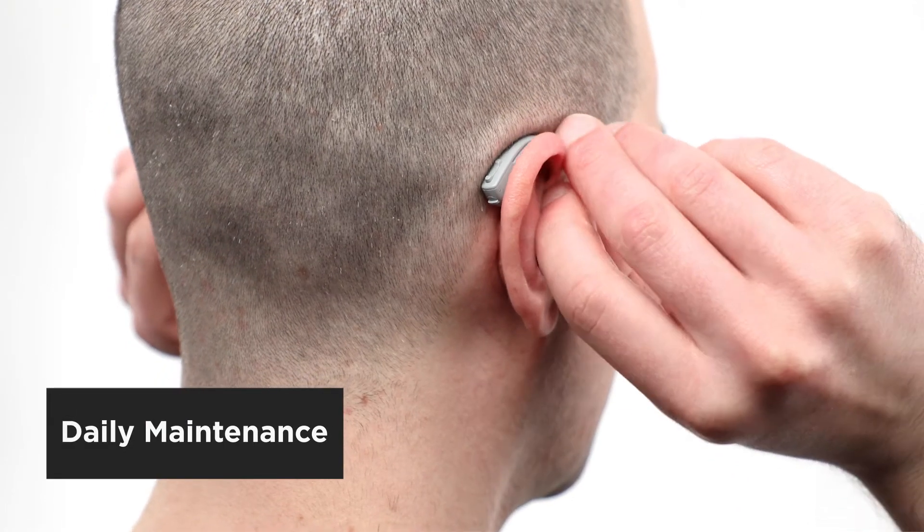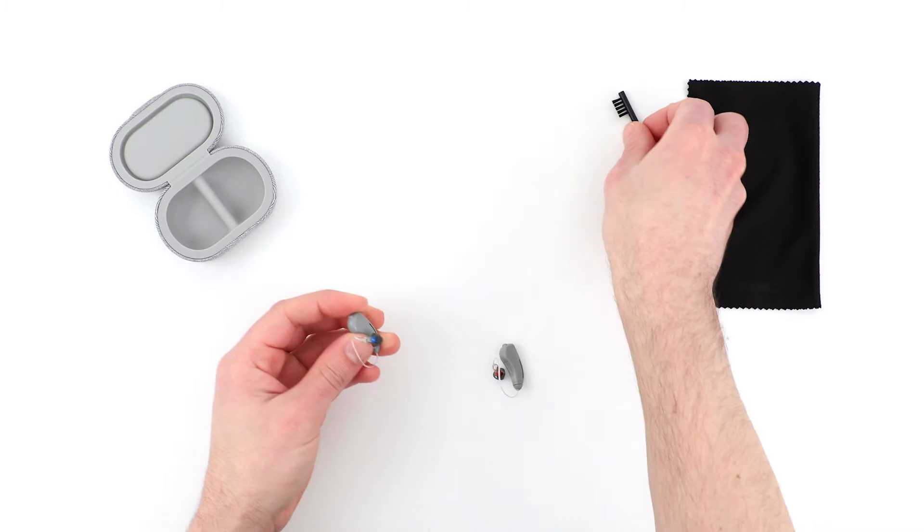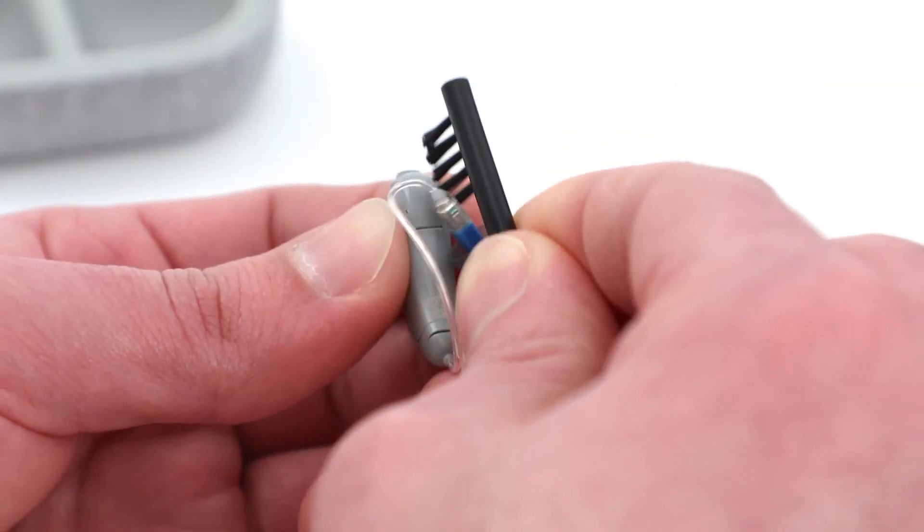Any time you're finished using the hearing aids, be sure to remove any debris from the microphones and hearing aid bodies with the provided hearing aid brush.